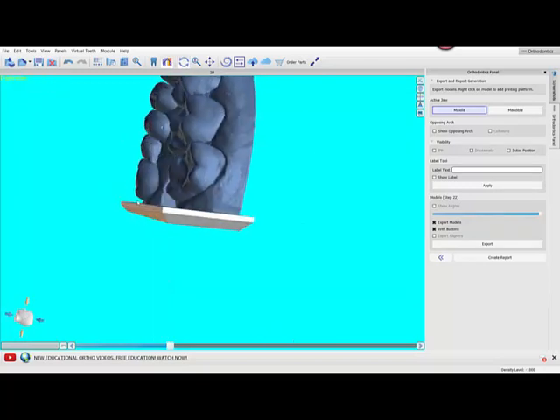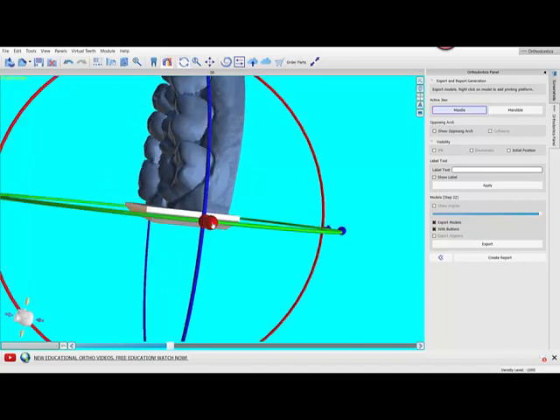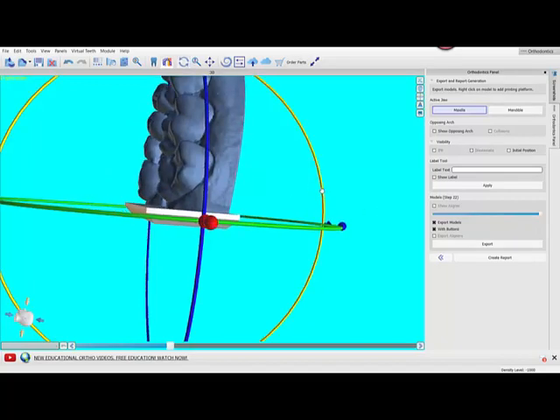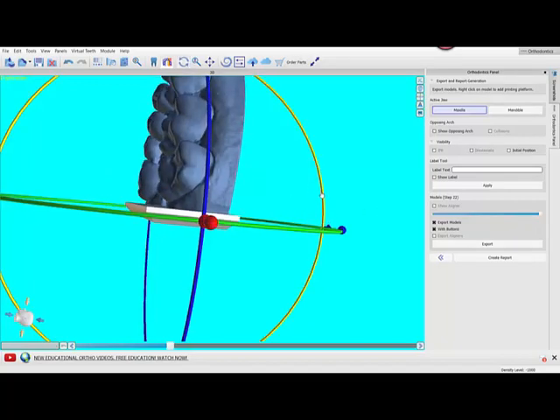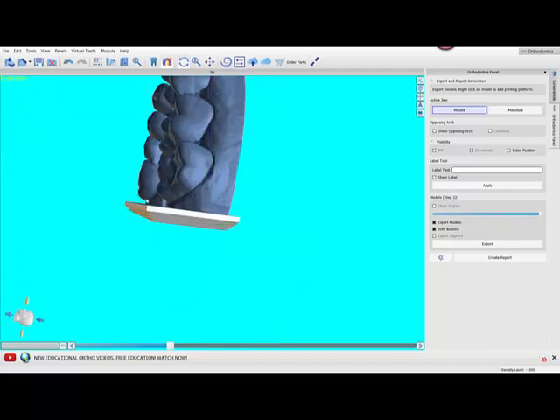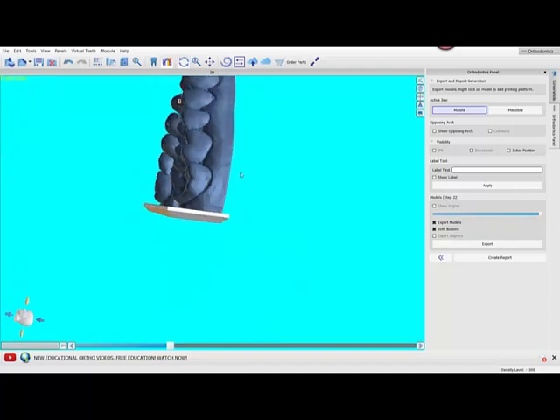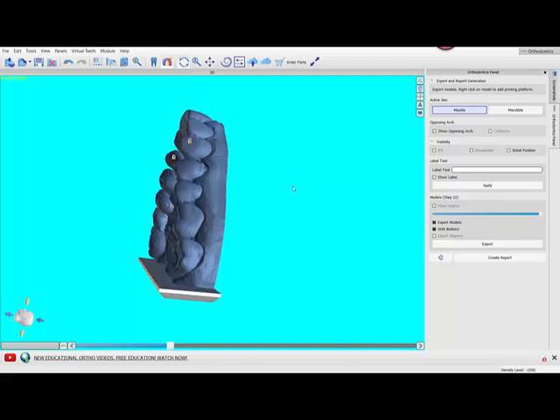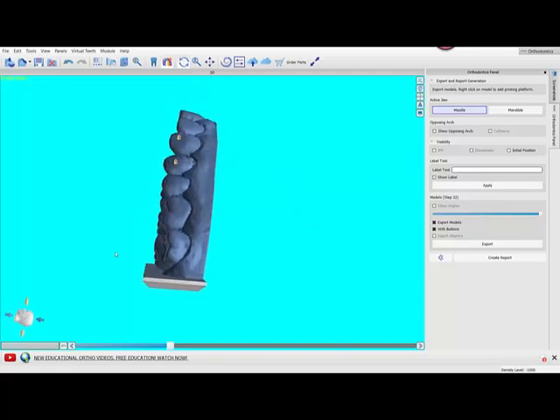These heels started at the distal aspect of these second molars. See how on the other side it's sort of sticking straight out? That's another reason to kind of tip it back a little bit so that it's not—the more straight out it is, the more risk you have of it failing. The rest of the model might print fine but this little part right here might not.